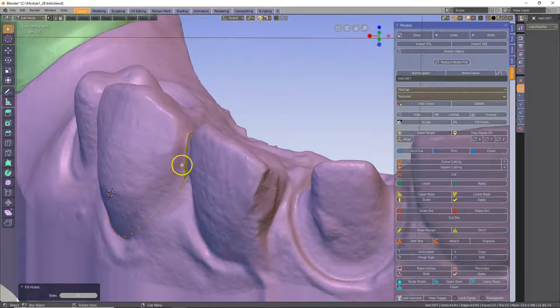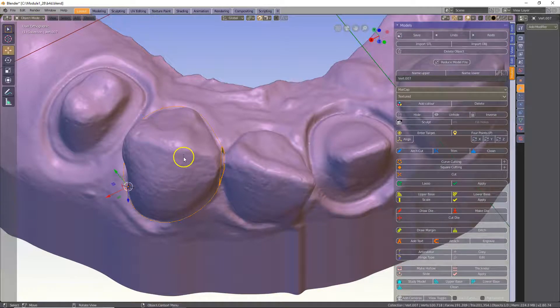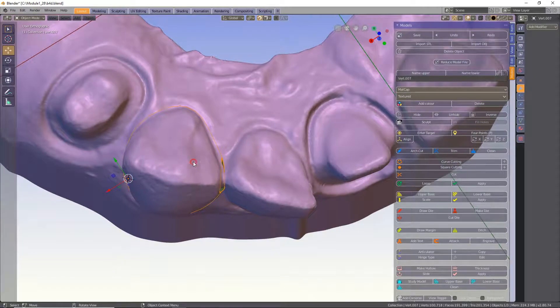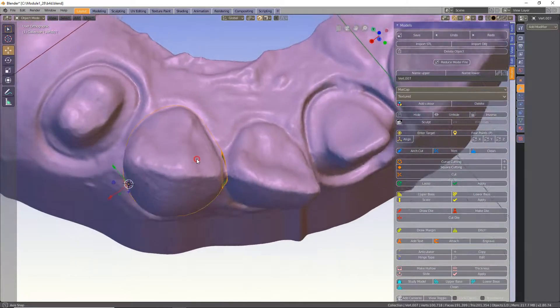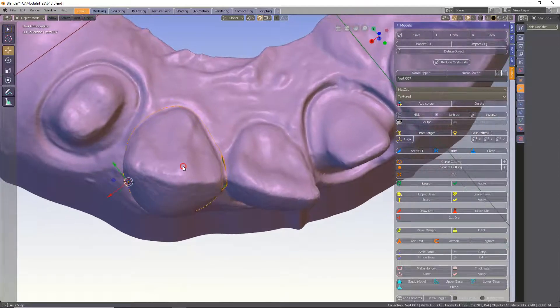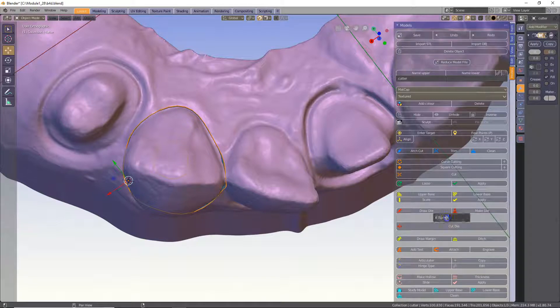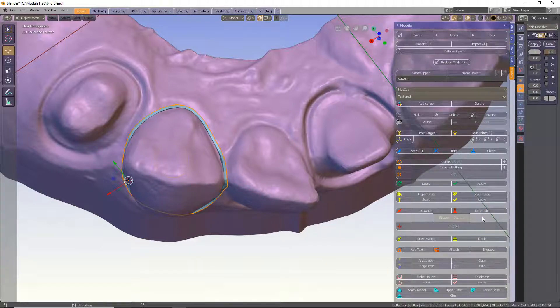This is very important because if the vertices come out incorrectly it will not extrude properly and it will not cut a clean mesh — your model may be hollow. Once you've done that, tab to exit and place your model so that it extrudes in a nice direction. You don't want to extrude it out of the side of the model, so place it where you want the die to extrude. Next, click make die, then select the spacer required. For our purpose 0.2 mm works pretty well, but this depends on your printer and your resin.